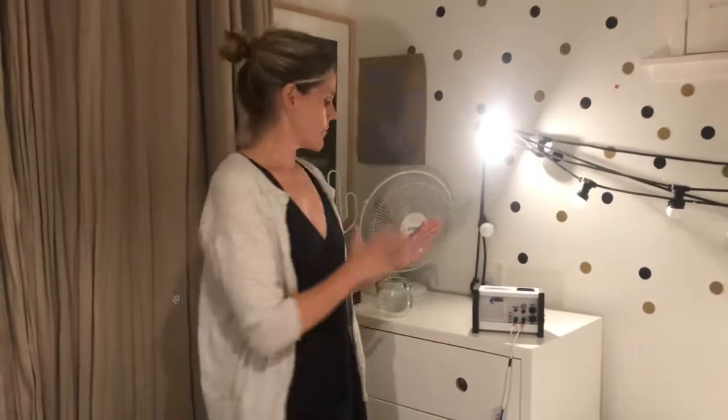As soon as your child has turned off the alarm, they'll take themselves to the toilet and come back, clean everything up, reset the alarm and get back into bed. If you're worried about siblings waking up to the alarm, don't worry too much — they manage to switch it off pretty quickly when they know the noise is not something they need to worry about.